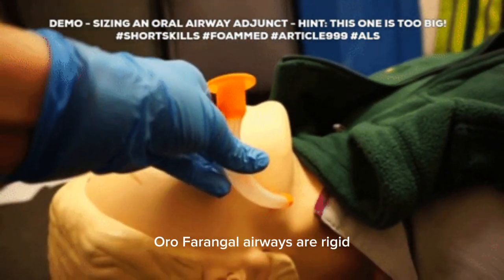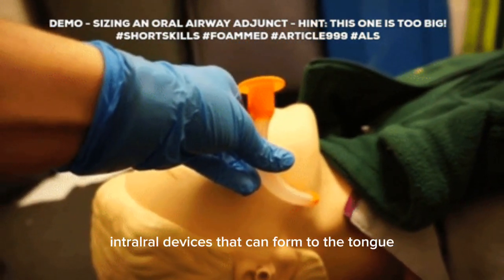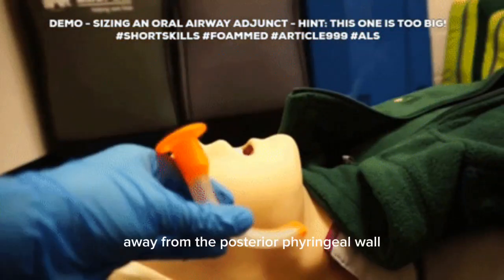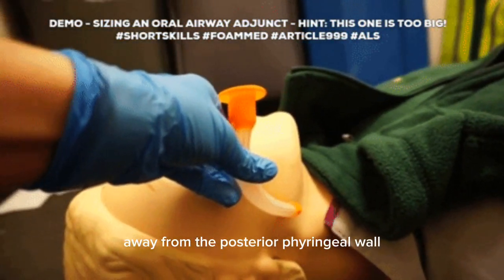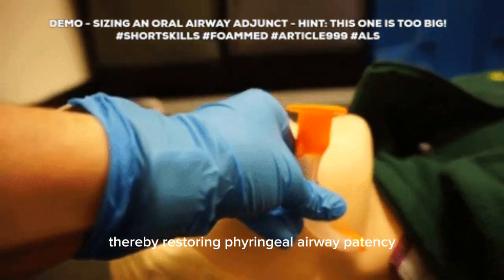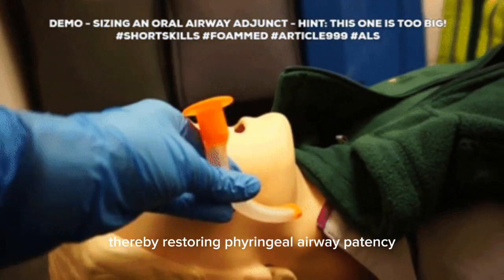Oropharyngeal airways are rigid intraoral devices that conform to the tongue and displace it away from the posterior pharyngeal wall, thereby restoring pharyngeal airway patency.